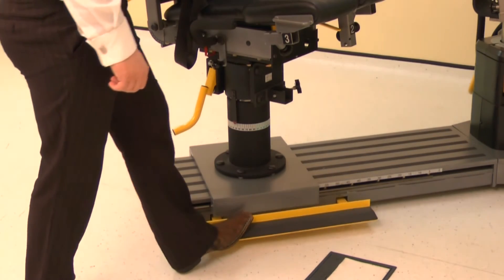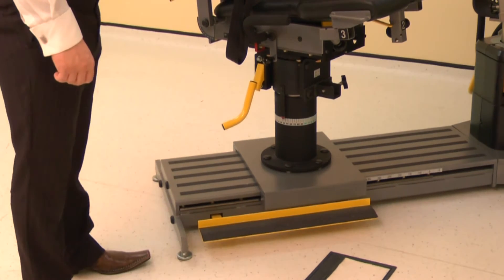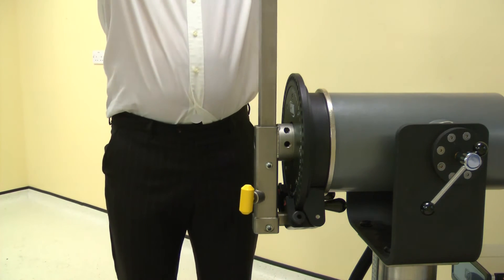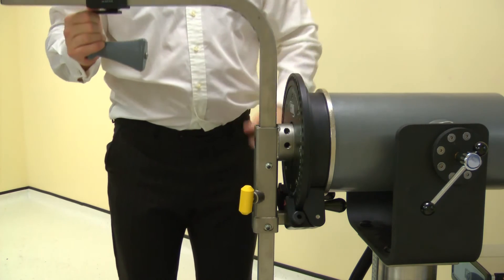Finally, position the monorail by pressing the kickboard and sliding the chair to position 48. Install the elbow/shoulder adapter into the long end of the input arm. Pull the locking pin to allow full installation. Secure with the locking screw.